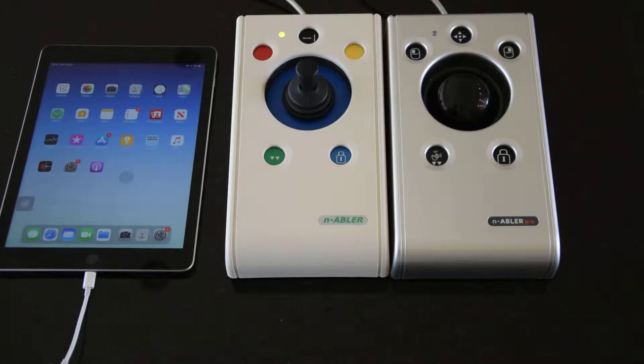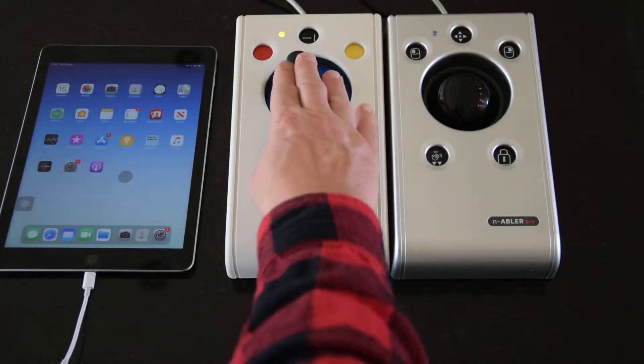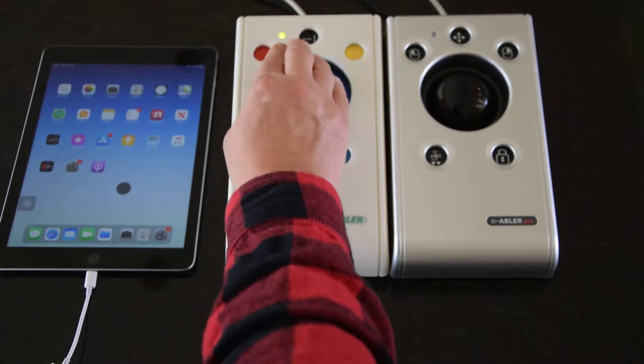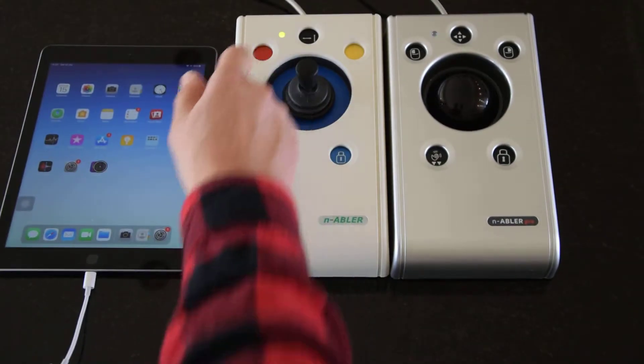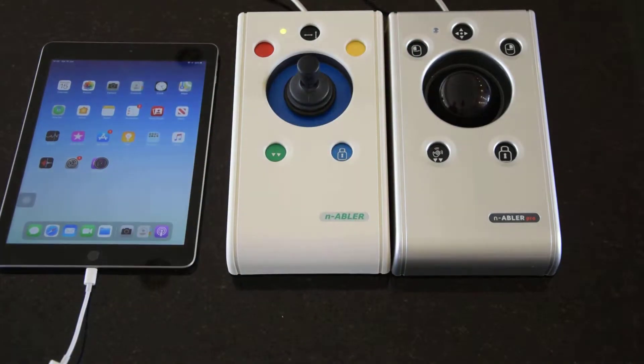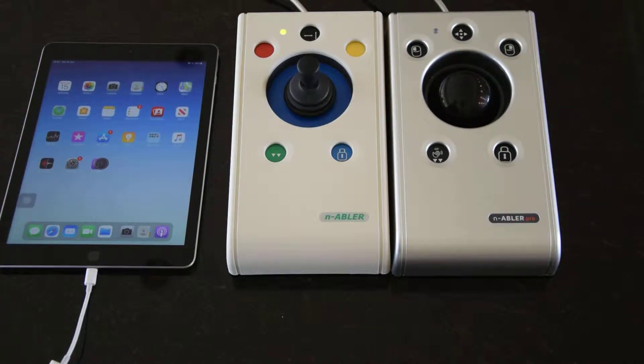As you can see from the LED being lit, the Enabler joystick is connected. Moving the cursor around you can see it move, and going into an app with left and right click you can also quit with the right click. The middle button doesn't actually behave as a standard middle button like on a mouse — it's actually the axis lock.